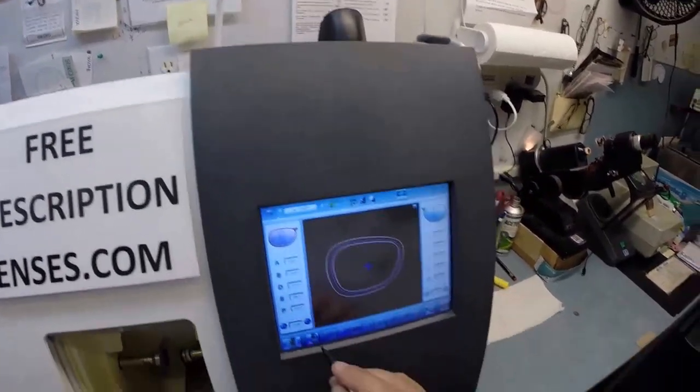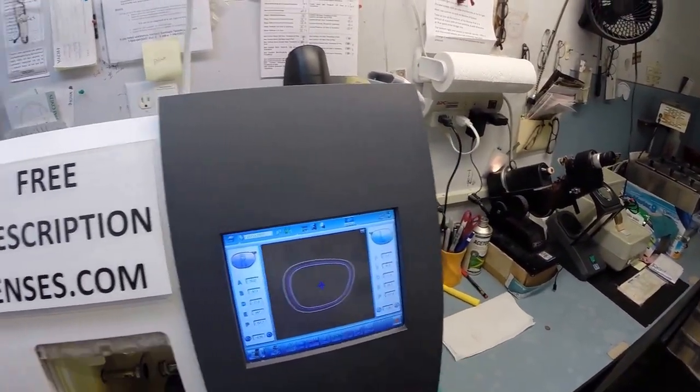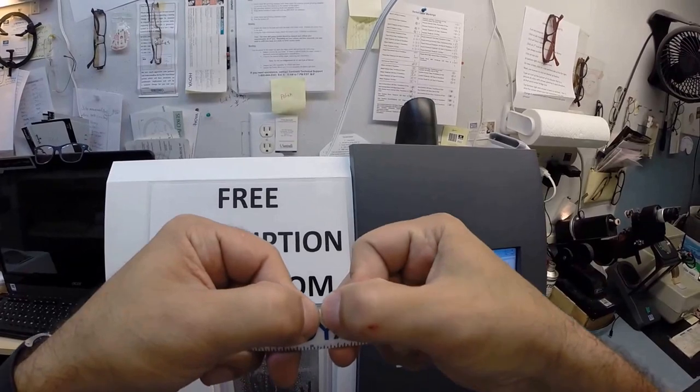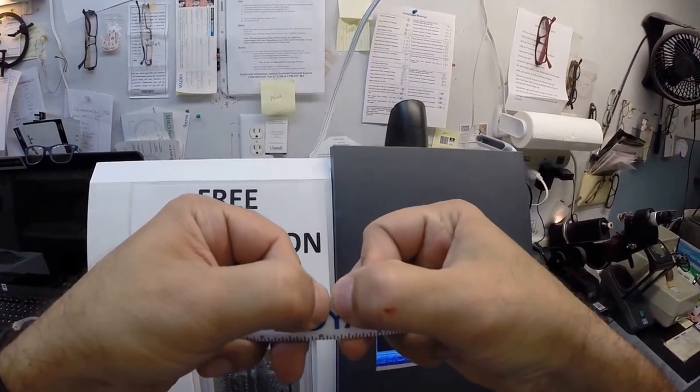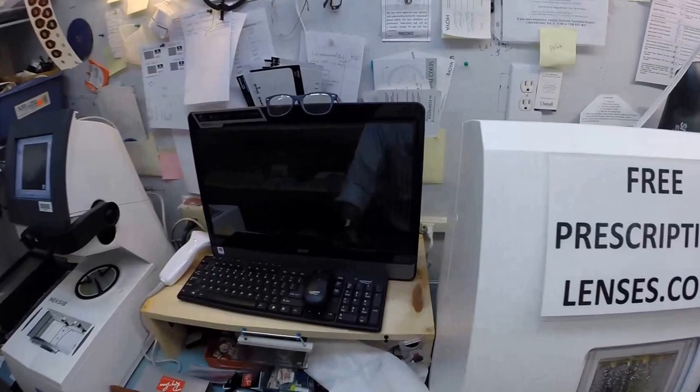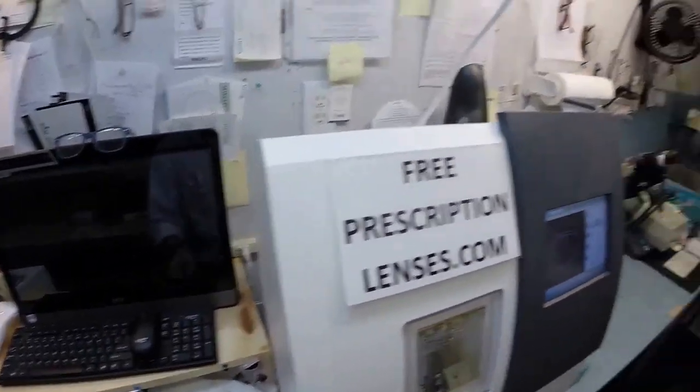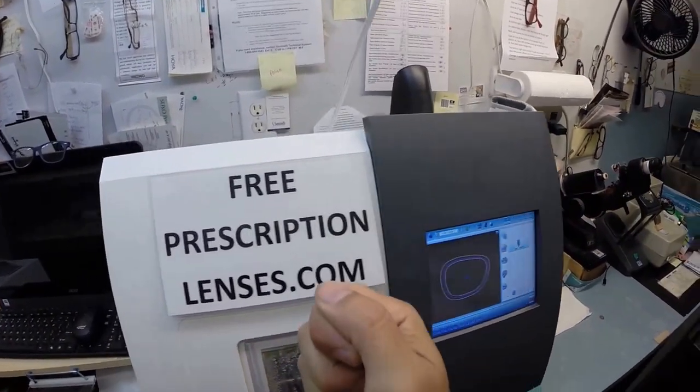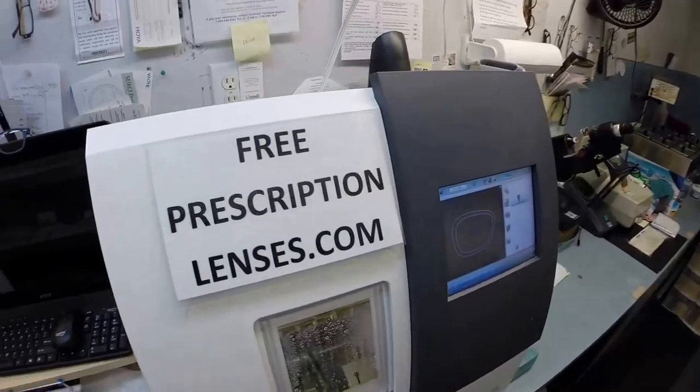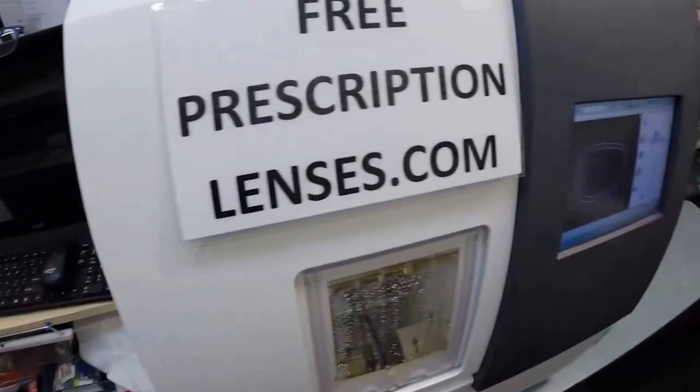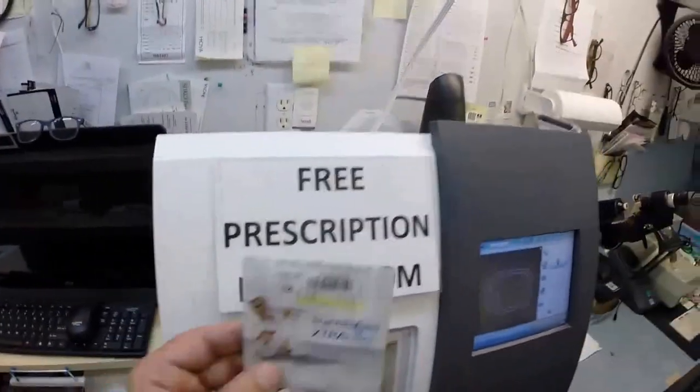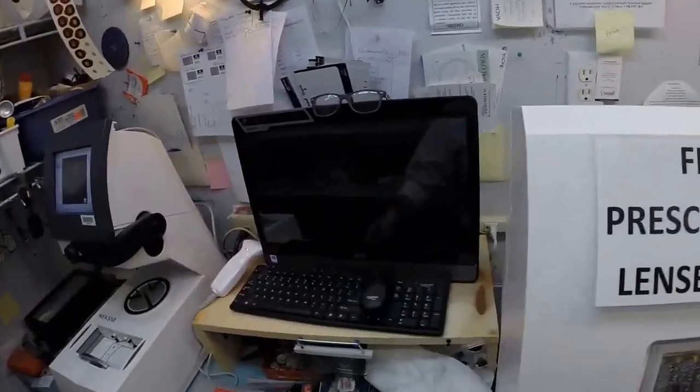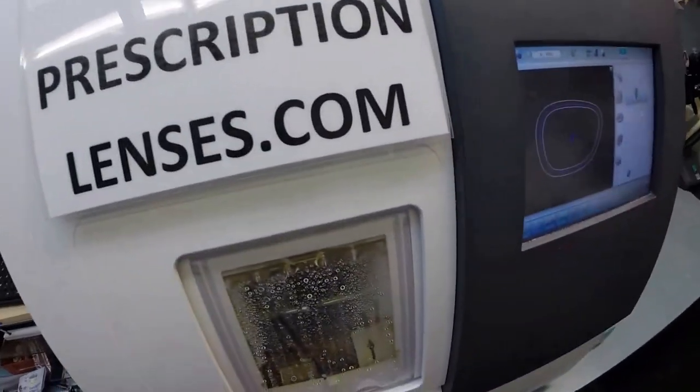I'm going to put the lens back in there and hit the minus button just a few times. We're going to take it down a quarter of a millimeter and hit retouch. Now a millimeter to all my American friends who have no clue: a millimeter is the distance between my thumbnails. I'm going to take one quarter of that distance off going around the circumference of your lens until it fits easily into the frame. Don't worry that's not blood, it's ink from my lensometer. If that were blood I would be screaming. That's how you can tell the difference. If there are any very active, extra active people and regular transitions don't get dark enough, this lens may be for you. Just be aware that it still keeps a little bit of residual tint even while indoors but it's going to get very dark outdoors, even by transition standards.